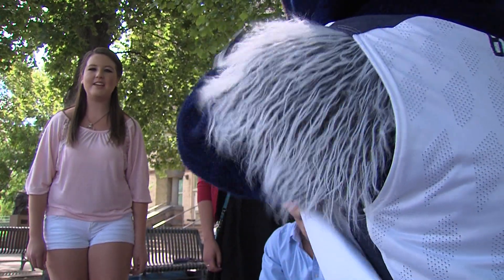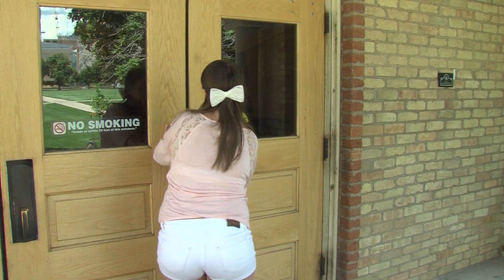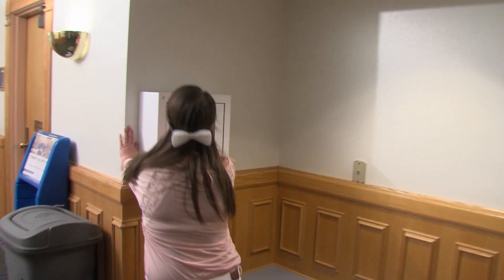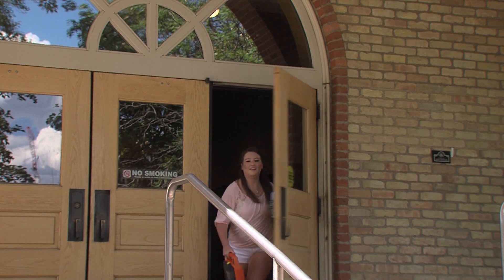My name is Mike Williams. I'm the Head Athletic Trainer at Utah State University. This situation happens a thousand times a day across the United States, with 360,000 cardiac arrests per year. Utah State University provides AEDs across campus so that you can respond to these emergencies.